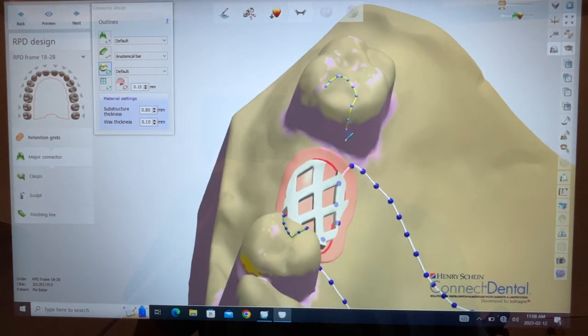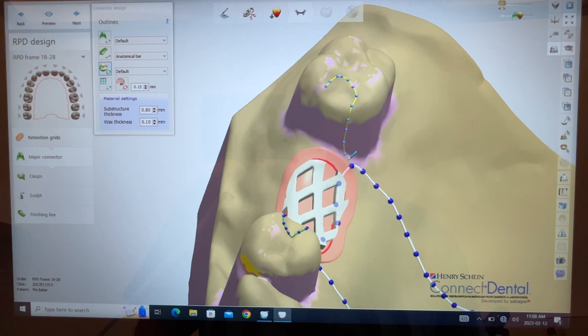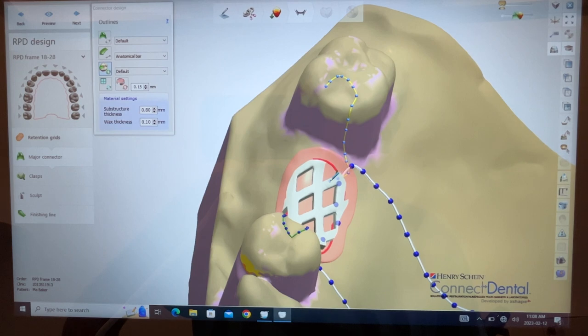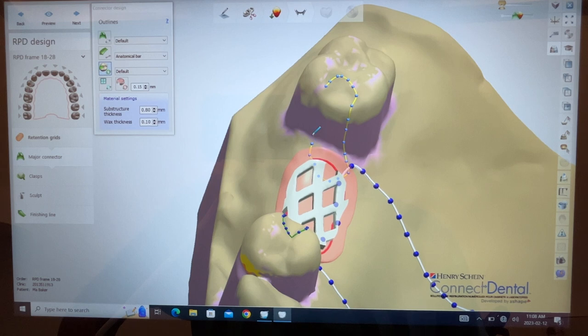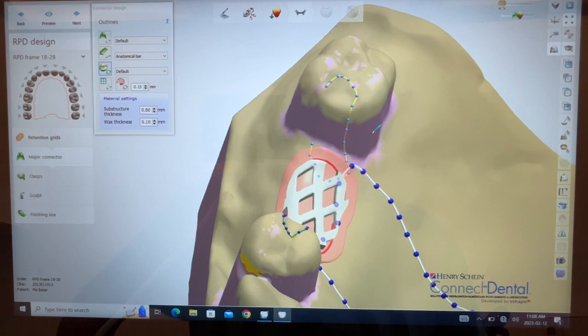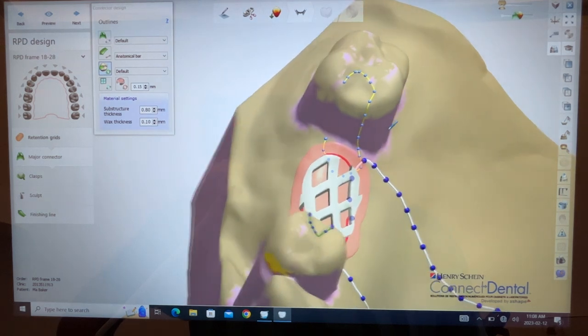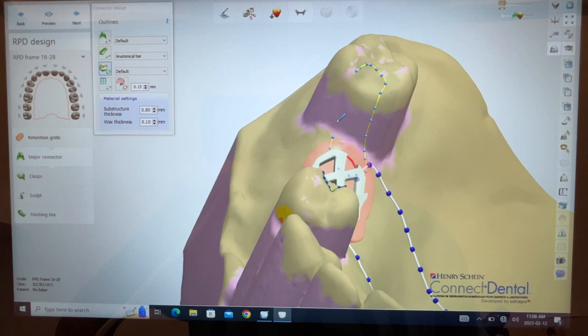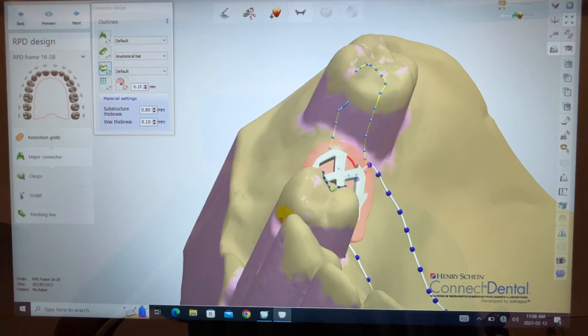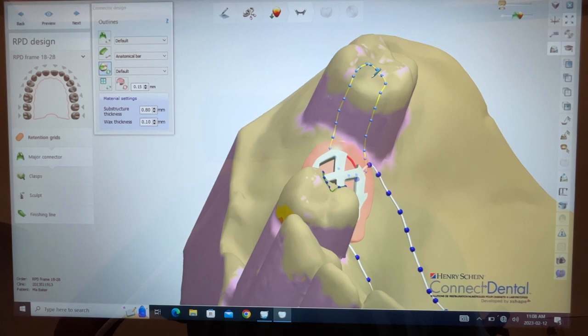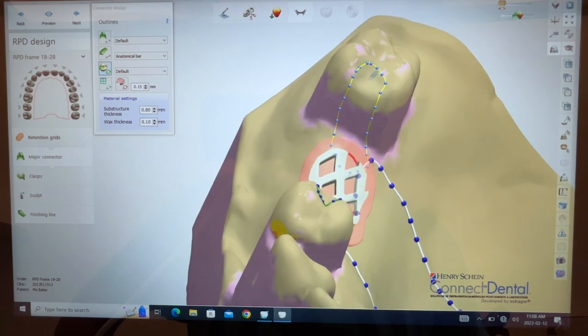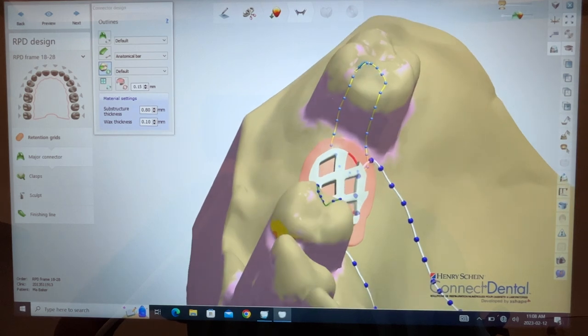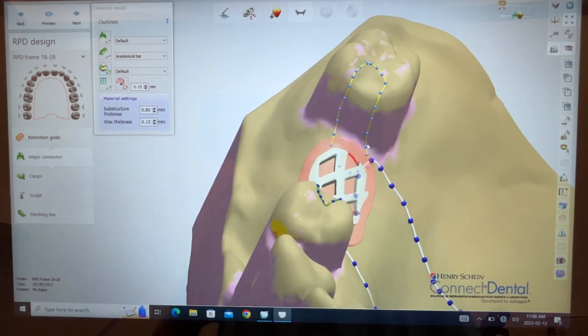Guide plane down. I want to join it here. I can always smooth it off. I think the challenge in digital is like, okay, what's this going to look like when I print? Is that what I would do if I was to wax and cast on the refractory model and then adjust on my next one? So I think I would have to do like ten prototypes of the same framework till I'm satisfied with thicknesses. Call that R&D, call that learning curve.